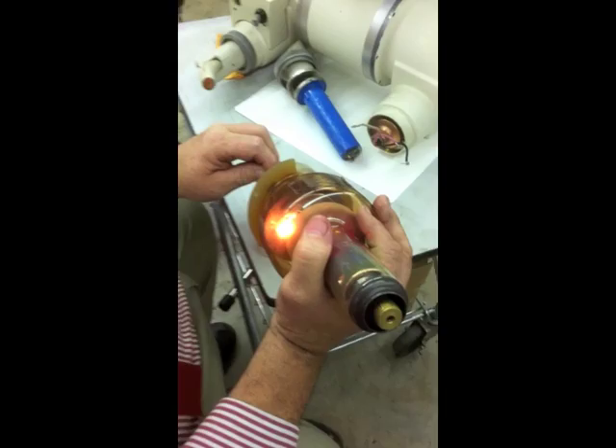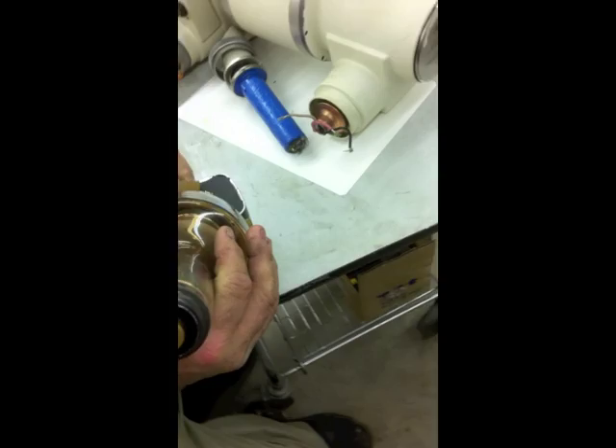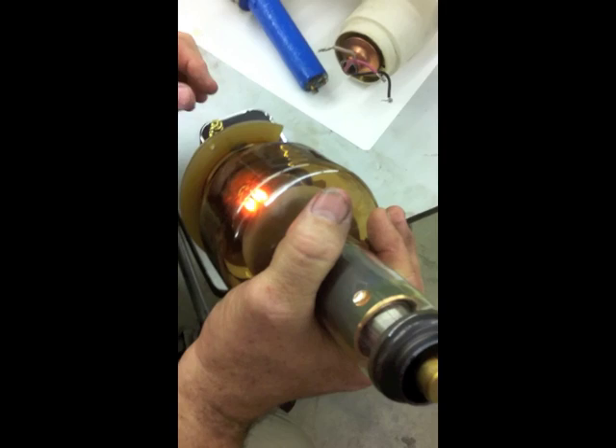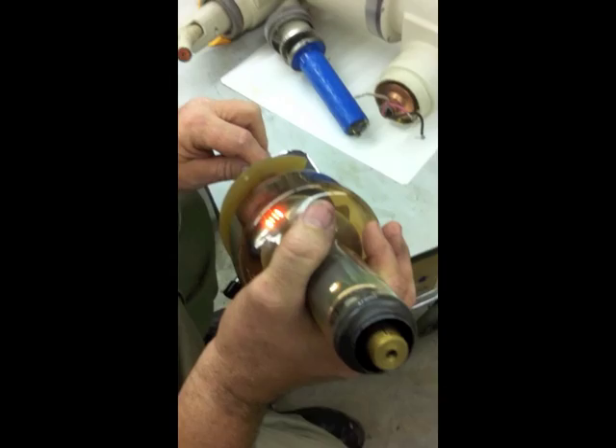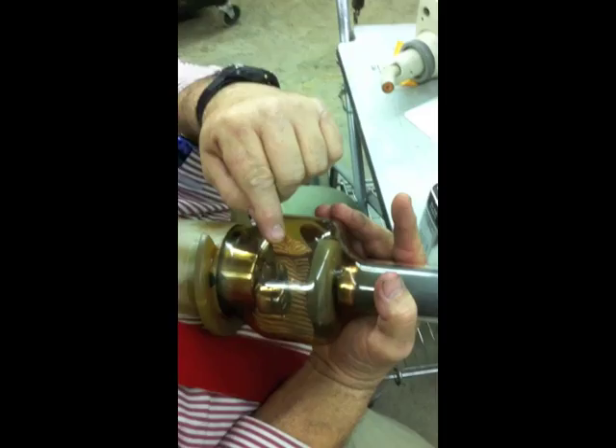So if you've got voltage going into the anode, will it rotate that? Into the rotor starter. So that'd be both of them — they're both dim. But see, what's around the filament is a focusing cup for the electrons. The filaments are in here and the focusing cup — the electrons travel in a fan shape toward the anode, and that forms the focal spot.